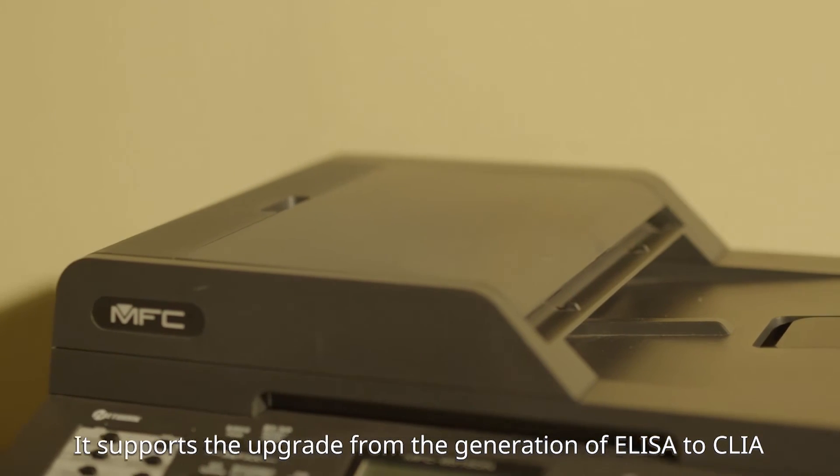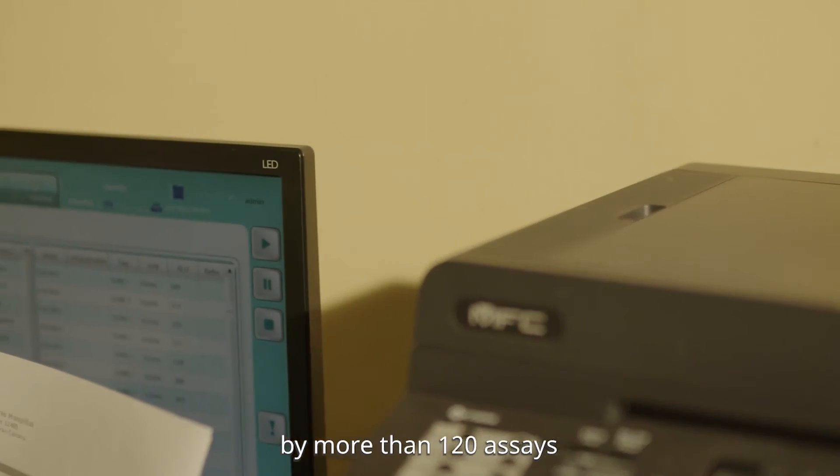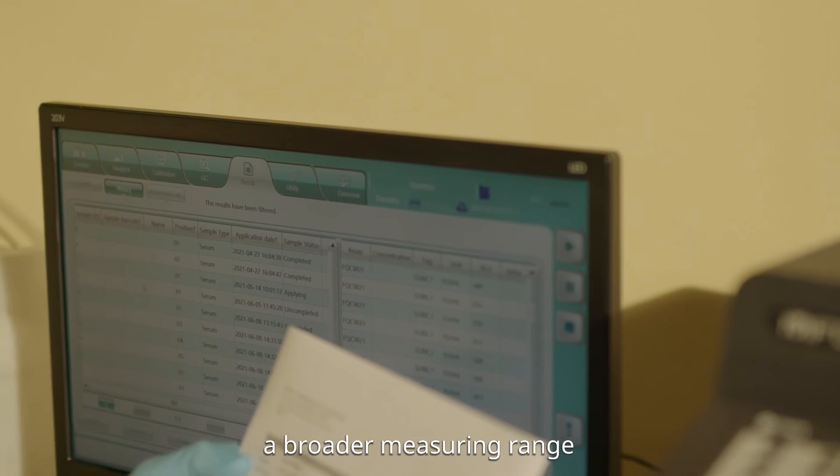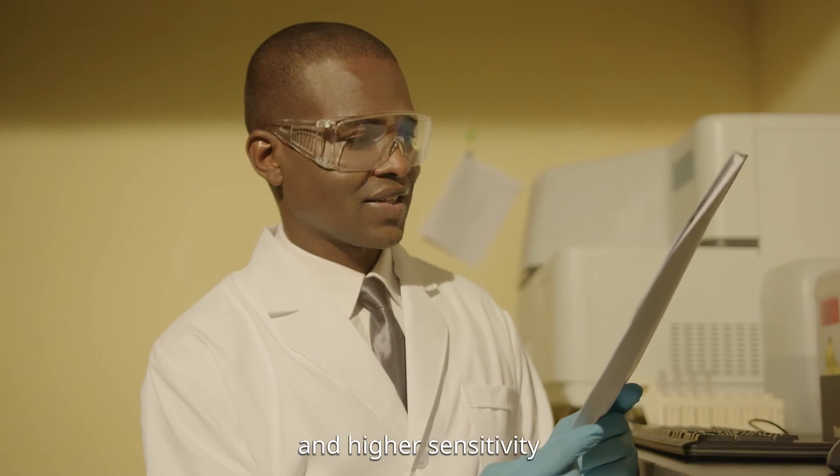It supports the upgrade from the generation of ELISA to CLIA. With more than 120 assays, the CLIA platform offers higher throughput, a broader measuring range, and higher sensitivity.